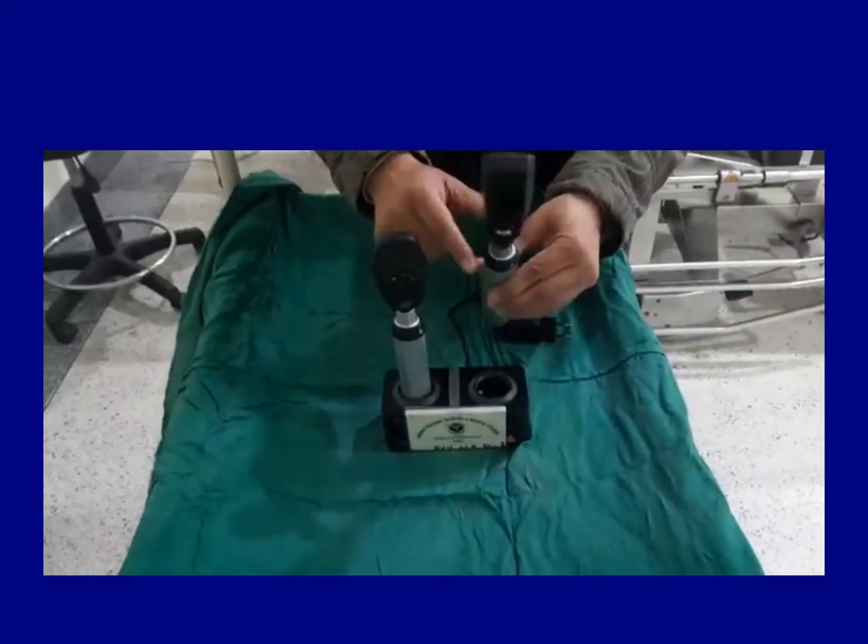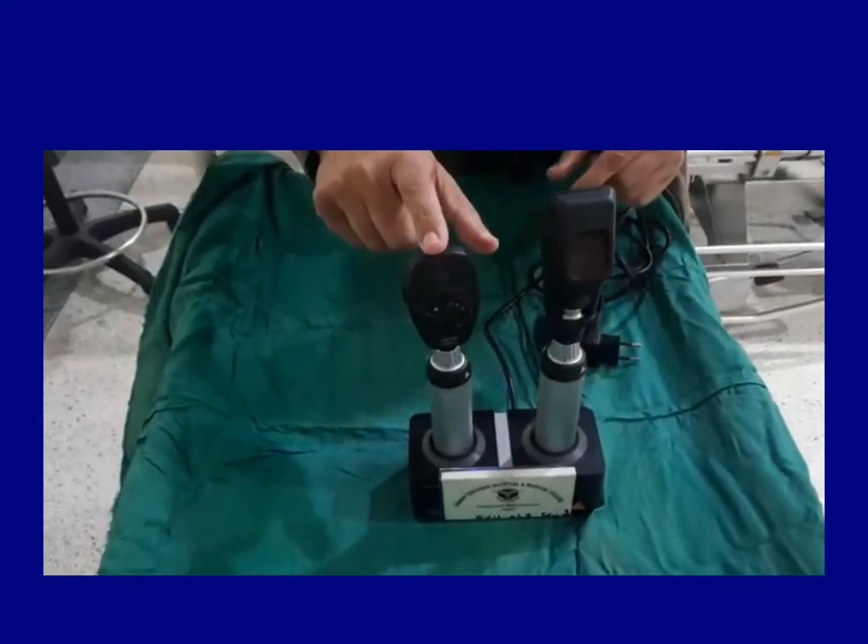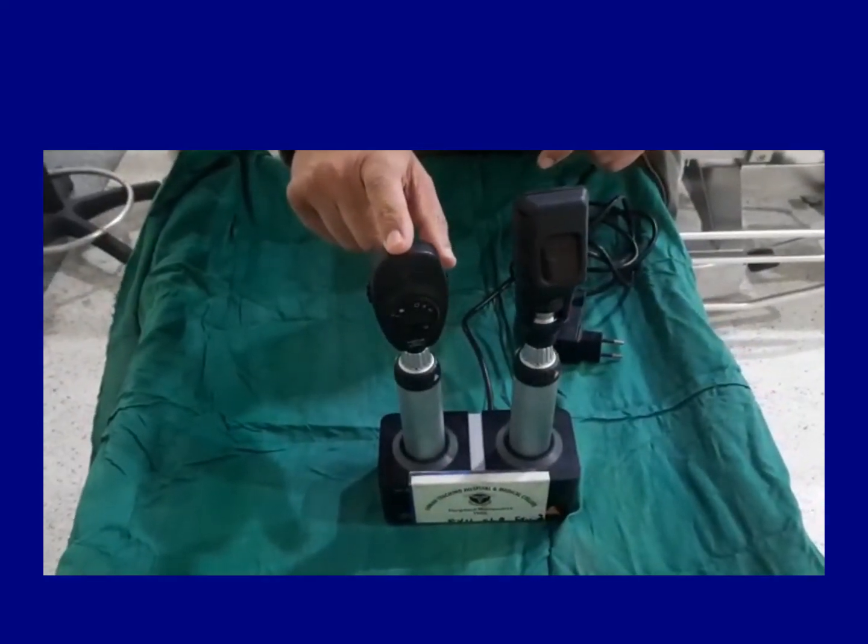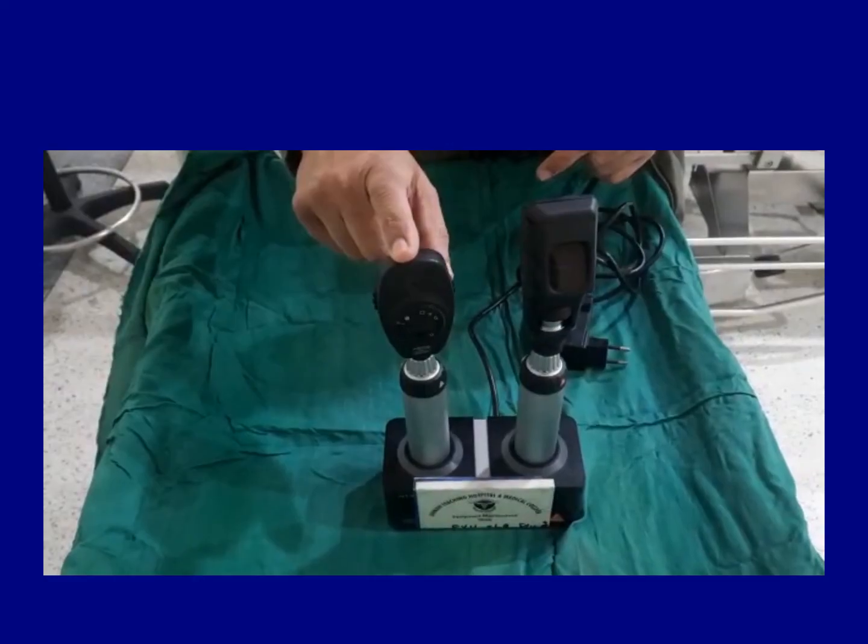So retinoscope is used for refraction and ophthalmoscope is used for ophthalmoscopy or funduscopy. Thank you very much for being with me.